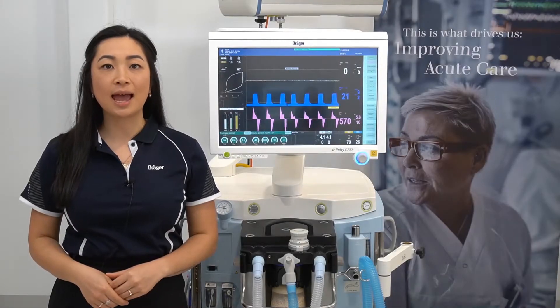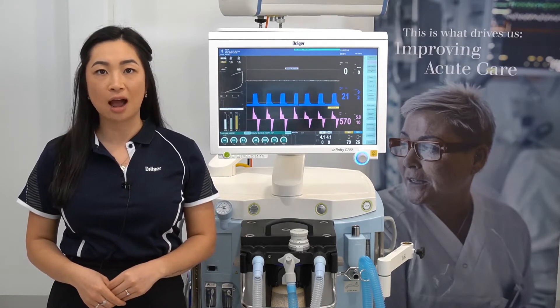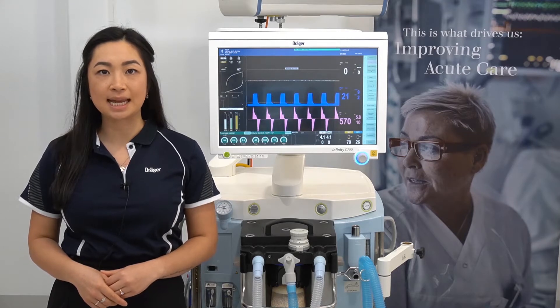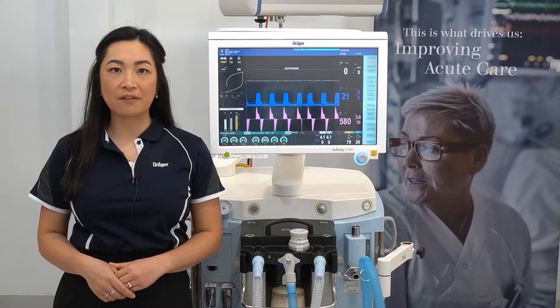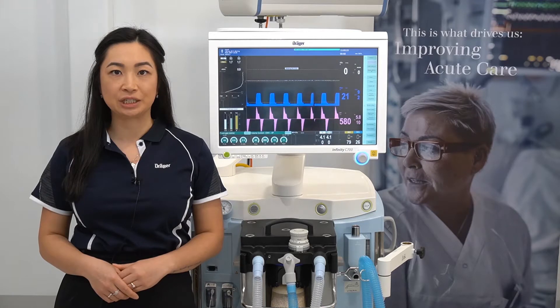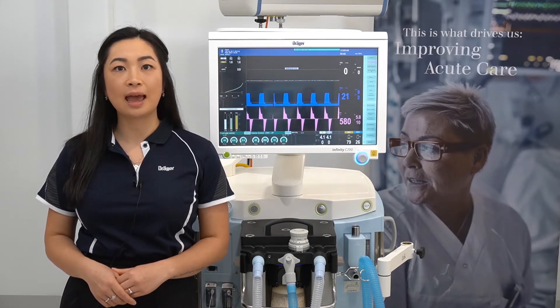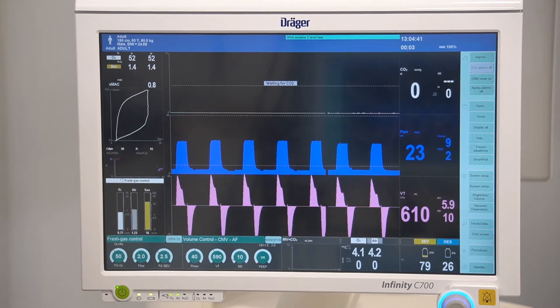Hello, my name is Samantha and in this video I'll be outlining integrated smart pilot view on the Zeus IE. Smart pilot view is a decision support tool which supports in achieving and maintaining an adequate level of anesthesia. It uses the patient demographics and all available information regarding the anesthetics given to the patient to calculate and predict the level of anesthesia. This is based on pharmacokinetic and pharmacodynamic models.